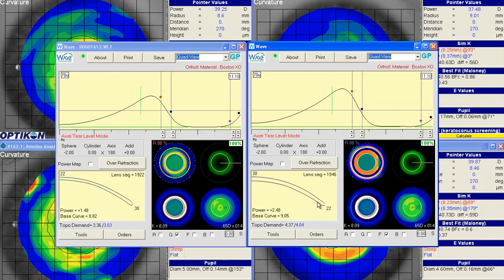I got the center thickness and edge thickness backwards, so you'll want to make sure. The differences are this new lens is in freeform, and it has an increased power, increased topo demand. And then you can see that it's a flatter lens as a flatter base curve. So this should resolve the residual myopia while maintaining the original parameters, except for the ones we wanted to change. I don't recommend changing the refraction. We want to make the changes down here to the lens power or the topo demand.